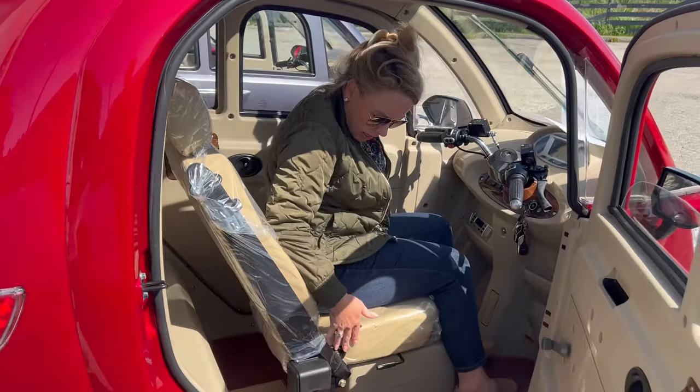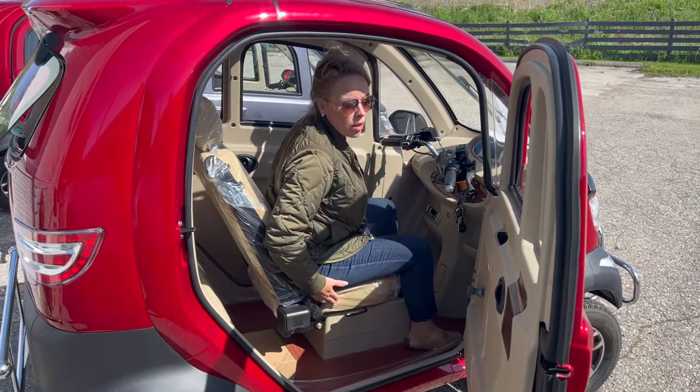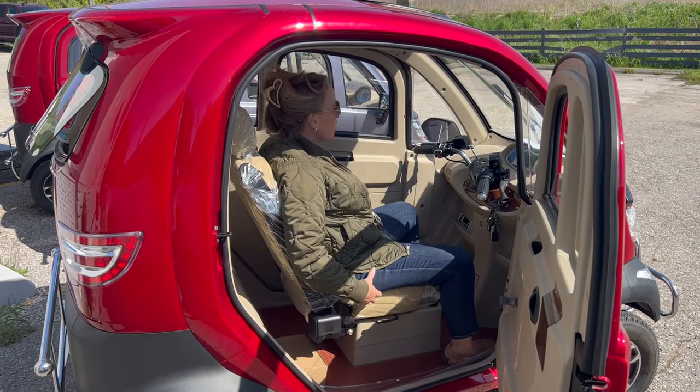I'm five-three. The seat's a little bit thin, but it's perforated, which is nice, and it's not dark so it won't get super hot. So if you're wider, you'll still fit, but you might spill off the seat a little bit like I do.